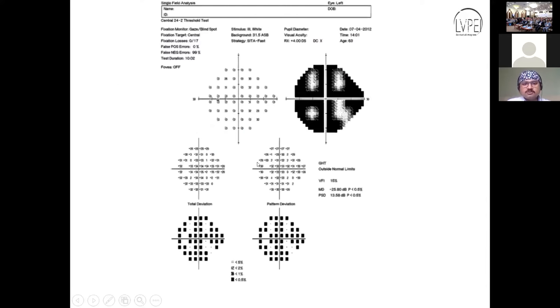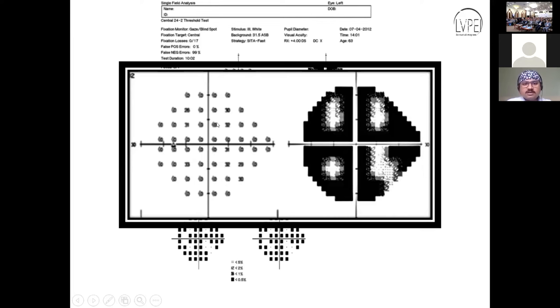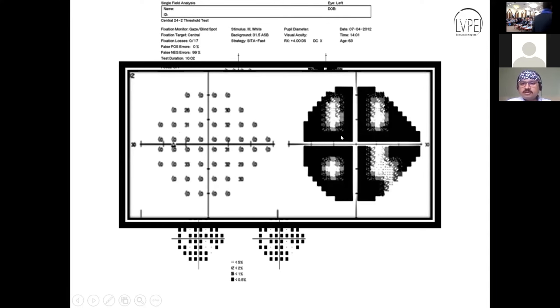Here is the first artifact where we see four dots surrounded by black. The initial points show the patient responded — those are white — but later responses are zero. This tells us the patient was attentive at the beginning but became inattentive or tired as the test progressed. This is mostly seen with high false negative errors and can be called the clover leaf pattern.